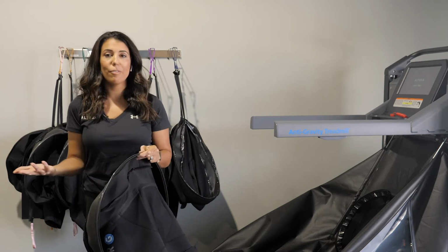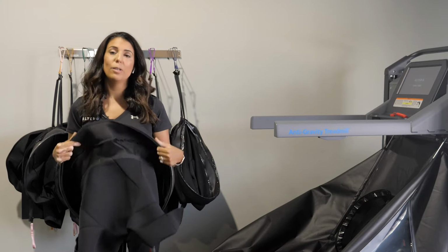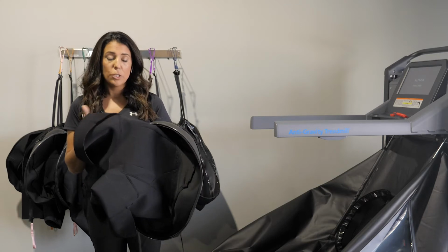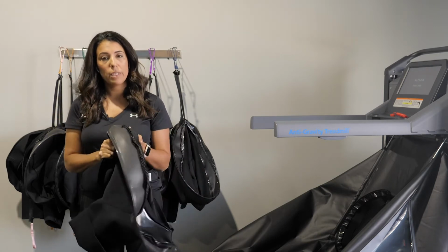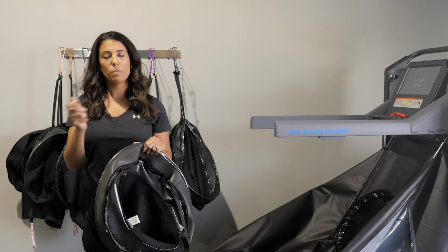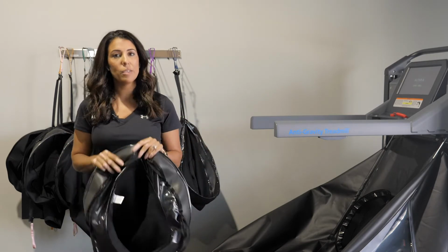But some everyday household cleaners are neoprene safe, and we can always guide you in that direction. The other part is at least once a week, they should be laundered. And they get laundered in a garment bag to protect the neoprene, and then they get hung dry. So it's really important to clean between patients, again, simply spraying them and letting them hang to air dry, and then disinfecting them at least once a week.